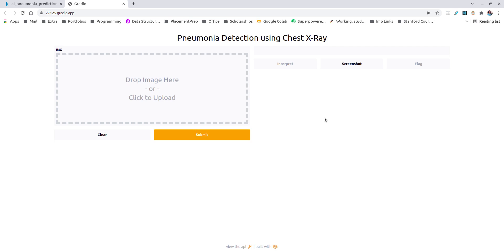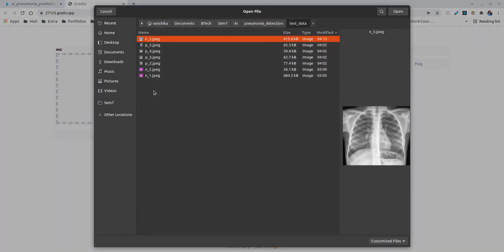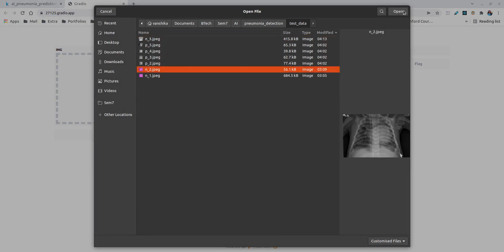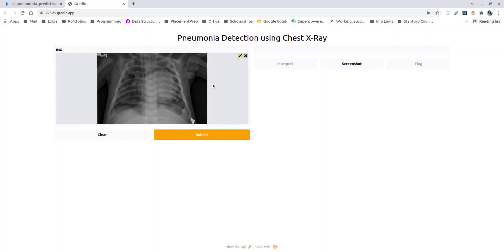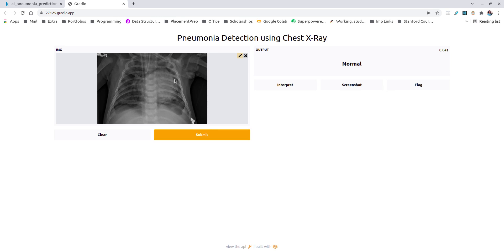There is a lot of usage of machine learning algorithms and deep learning algorithms to analyze and diagnose images. My project also focuses on a very small application of convolutional neural network wherein I'm trying to analyze the X-ray images to detect whether the patient has pneumonia or not. Let us first have a small look at a simple UI which has two components: one is the input field, a simple image input field, and the other is the output label field. For this video I've collected some random samples to put into the system.